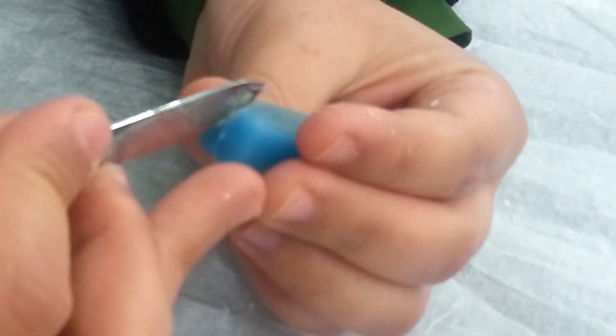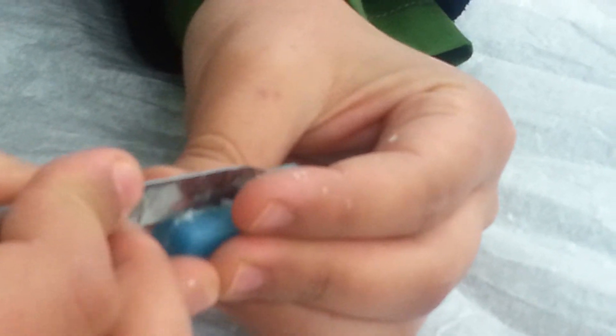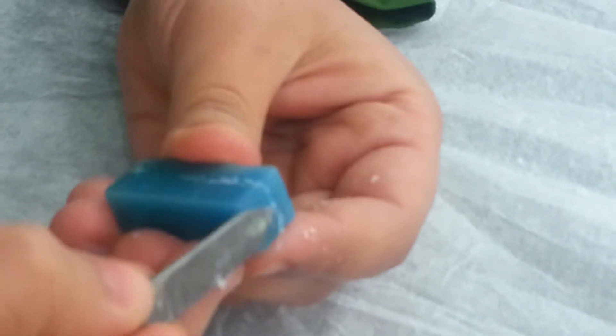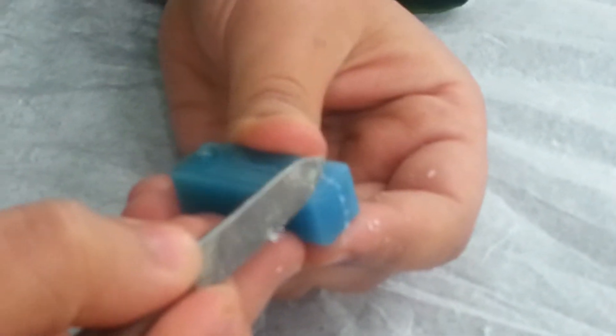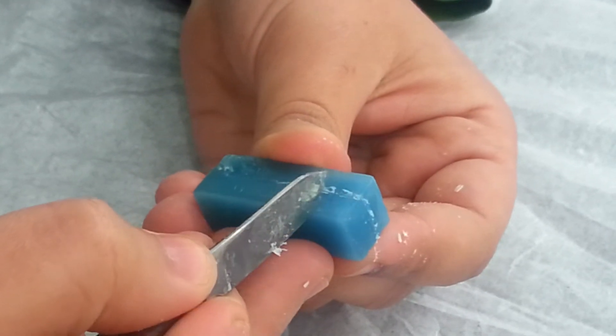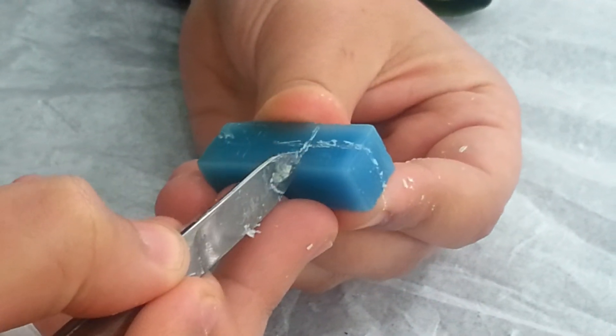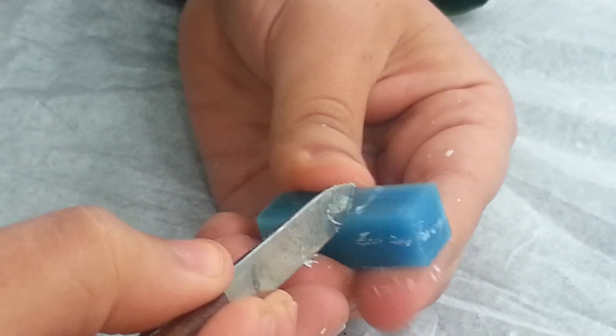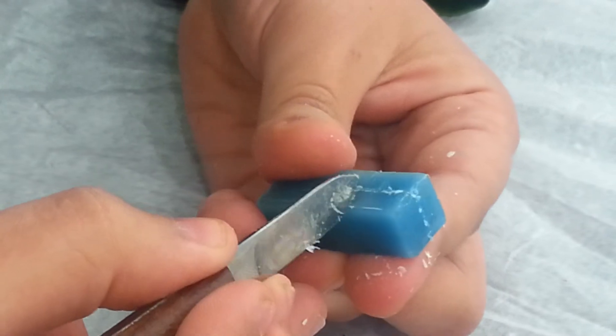Let's go to the side. We will put the edge on the block of 2 mm, which represents the length of the crown, and this is 2 mm all around the block.